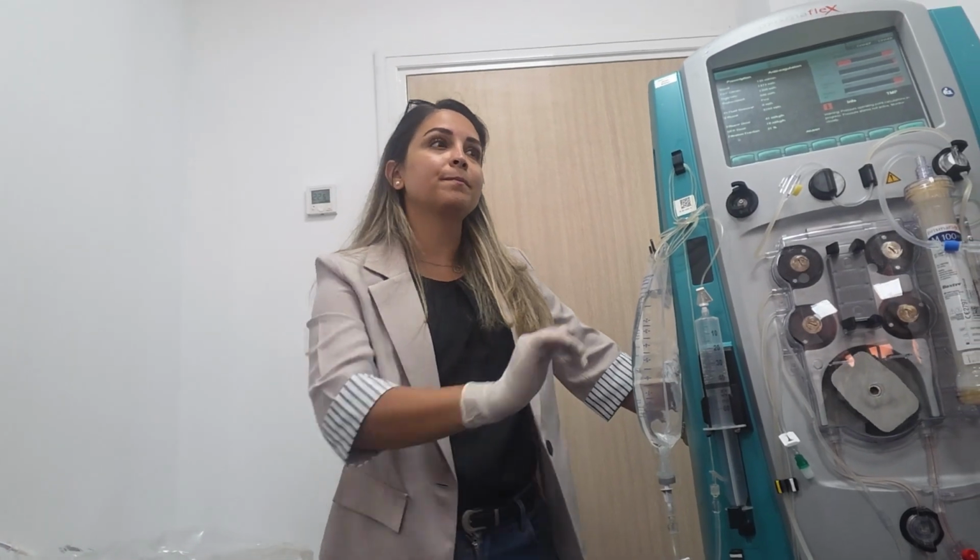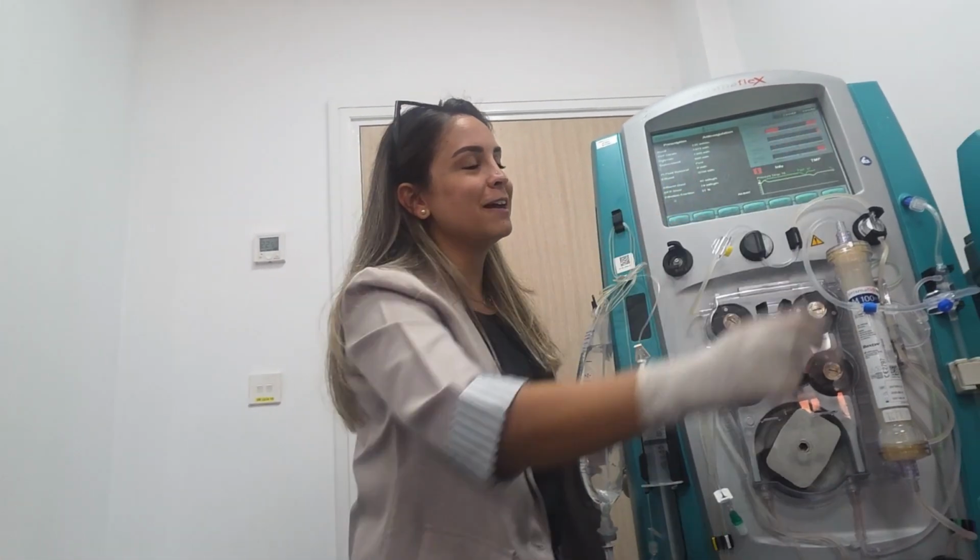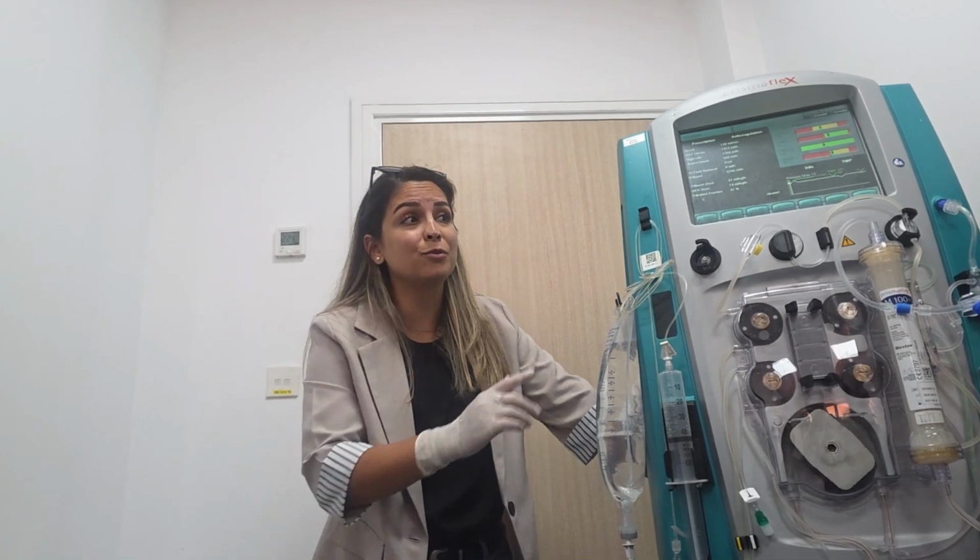Transmembrane pressure, TMP. When do you stop the session? If it is more than 300, they will not stop the pressure. If it is more than 300, also we are running? No, please, you will have clotting then. So at 300, it's better to stop. The magic number is 300, so you are able to return the blood to your patient. More than this, you will have clotting, so you can't return it.